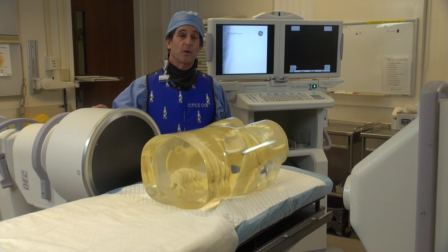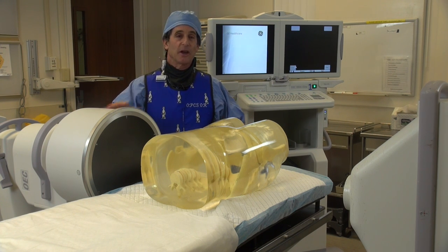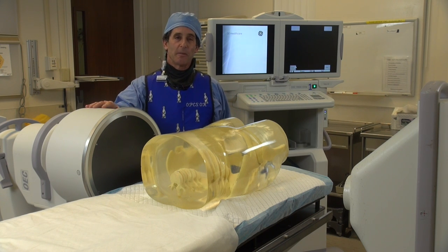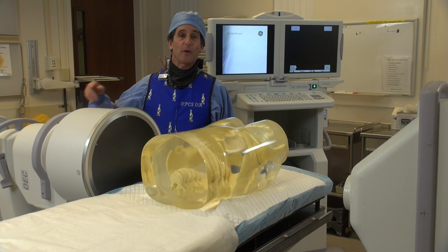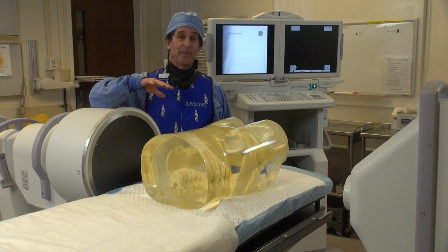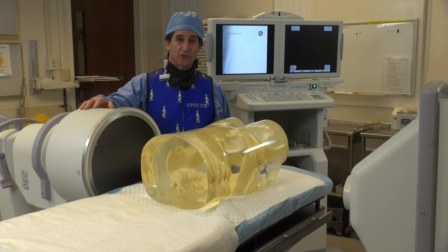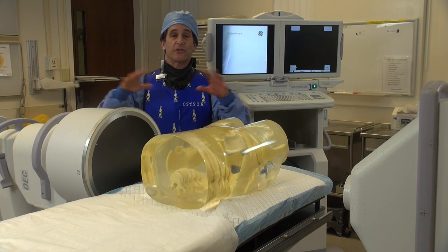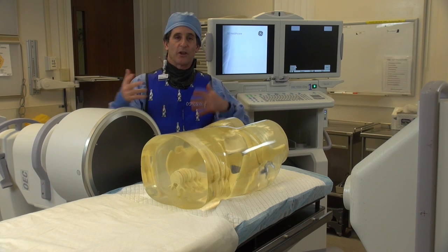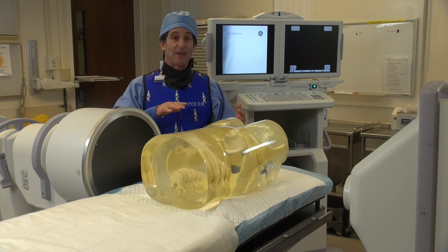On some equipment, whether it's C-arms or in your room, it might be called pediatric — whatever — it still means the same thing. As you'll see in a moment on the control panel, when I hit that button, it's going to basically cut the mA about in half, and it's going to give you a few more kV also. That's just what it's going to do as its initial setting. Then once you're starting to X-ray, it'll change itself again, but it's always going to basically stay at half that mA.